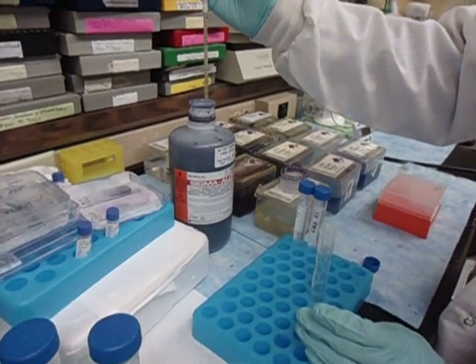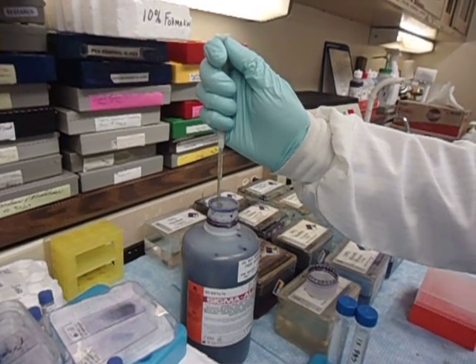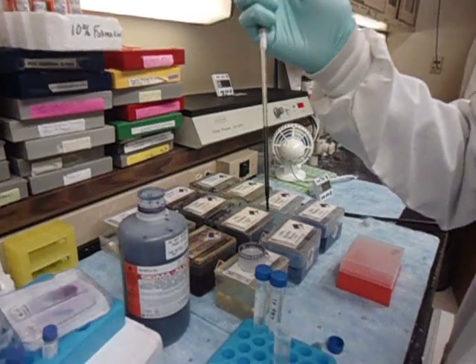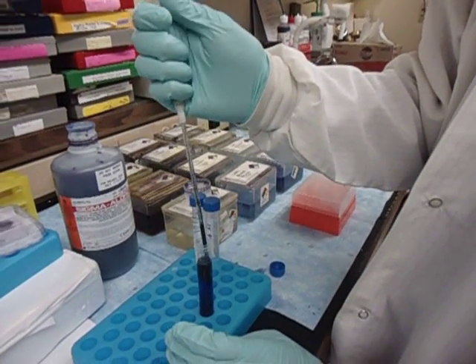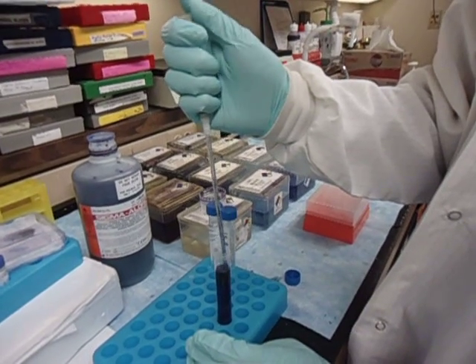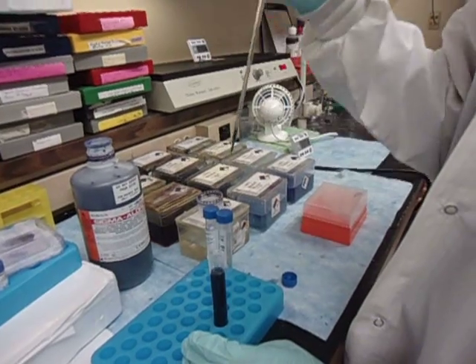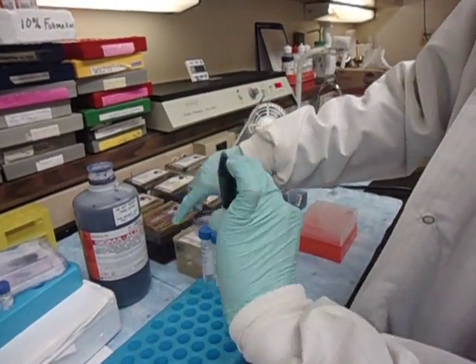You want to make sure not to move the bottle because there'll be sediment at the bottom. I'm going to pull out 0.5 ml, add it into the solution, and mix it up and down. I usually cap it and mix it well.